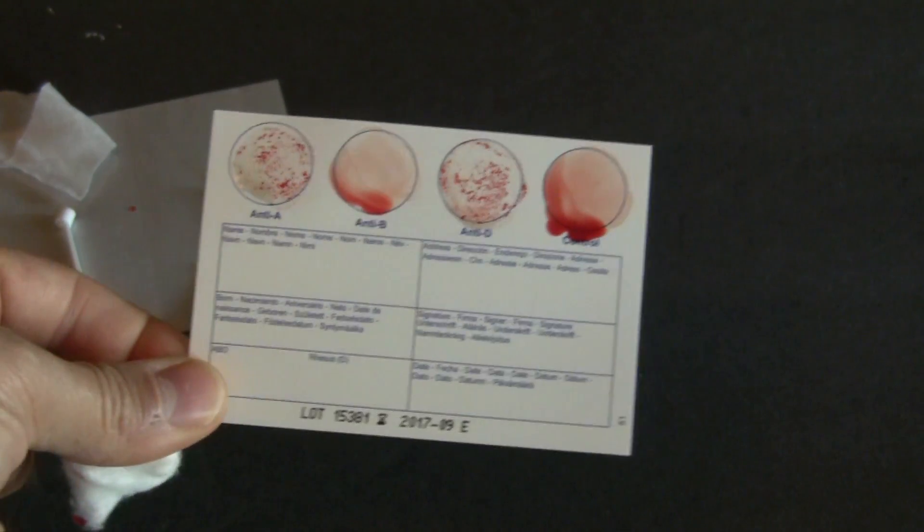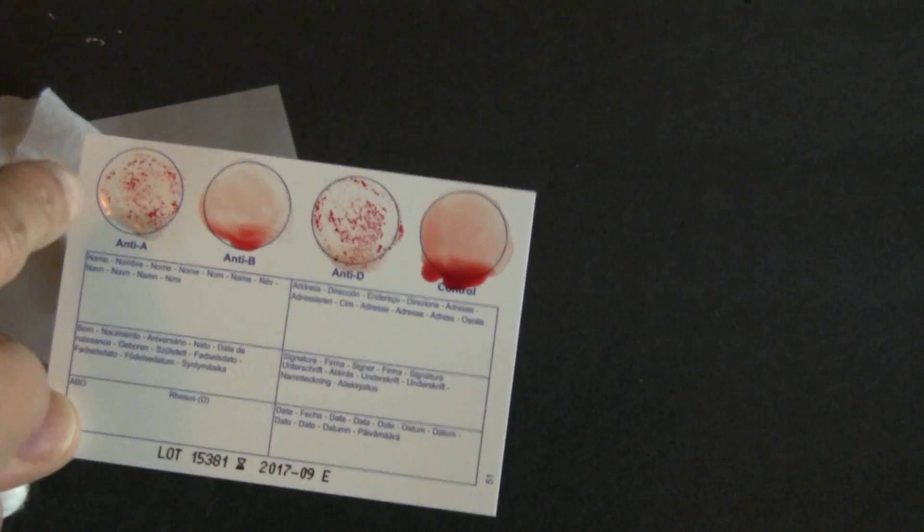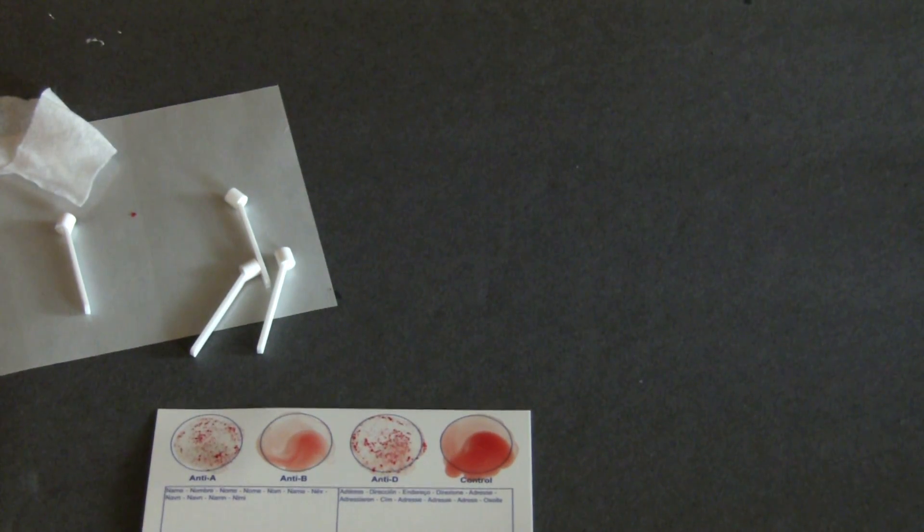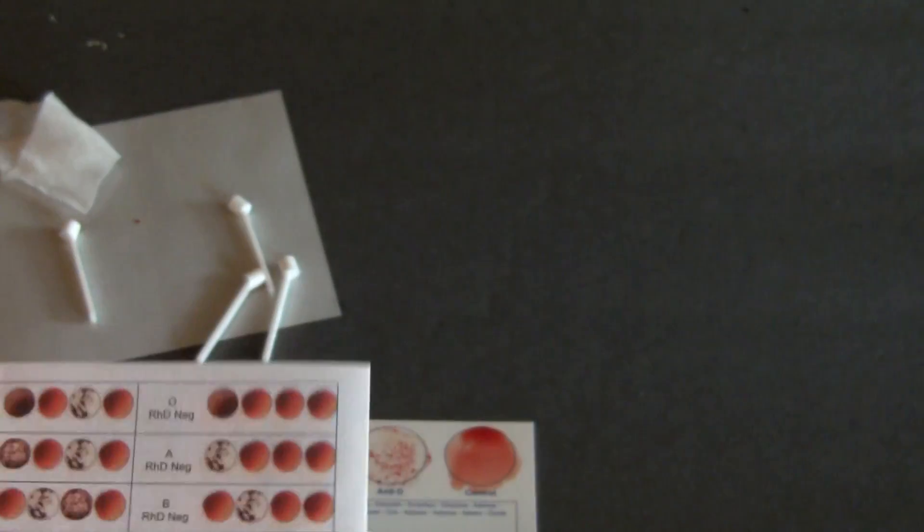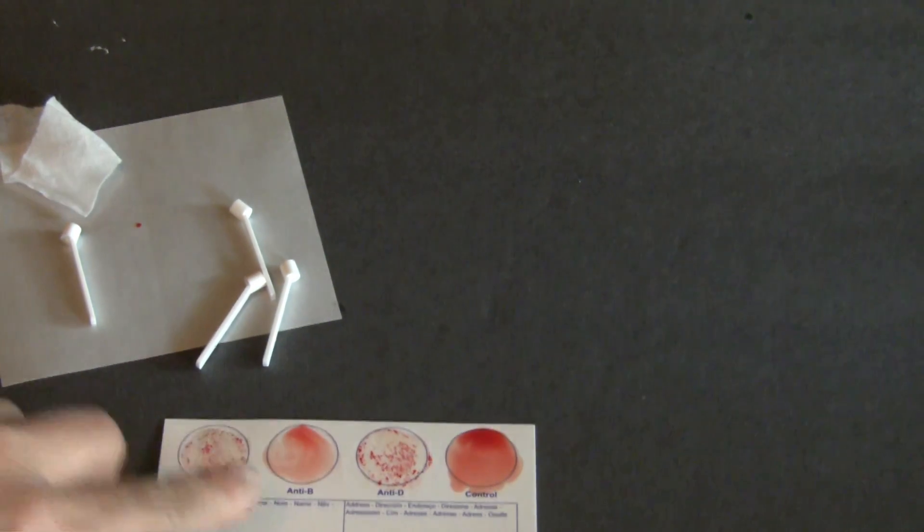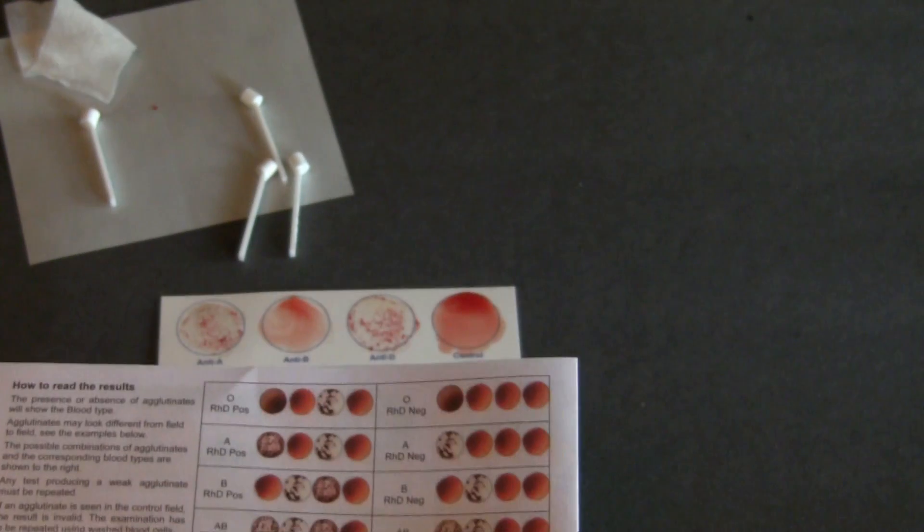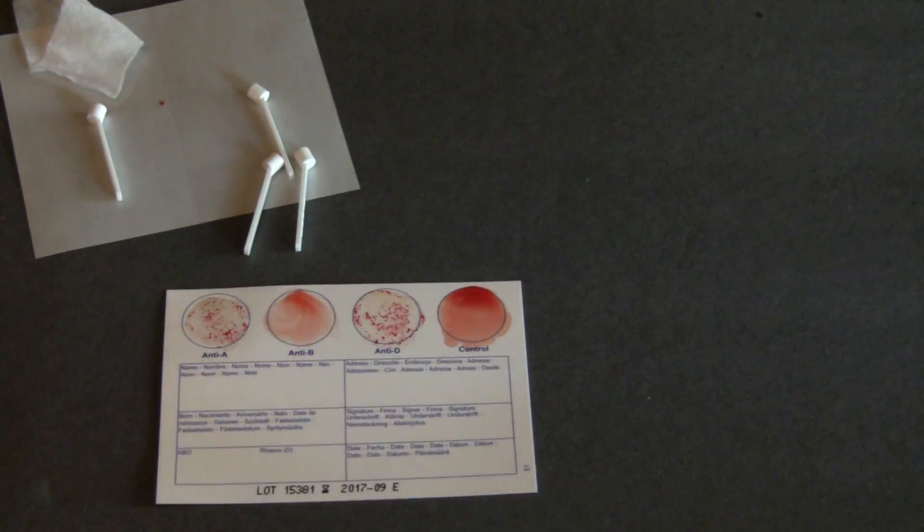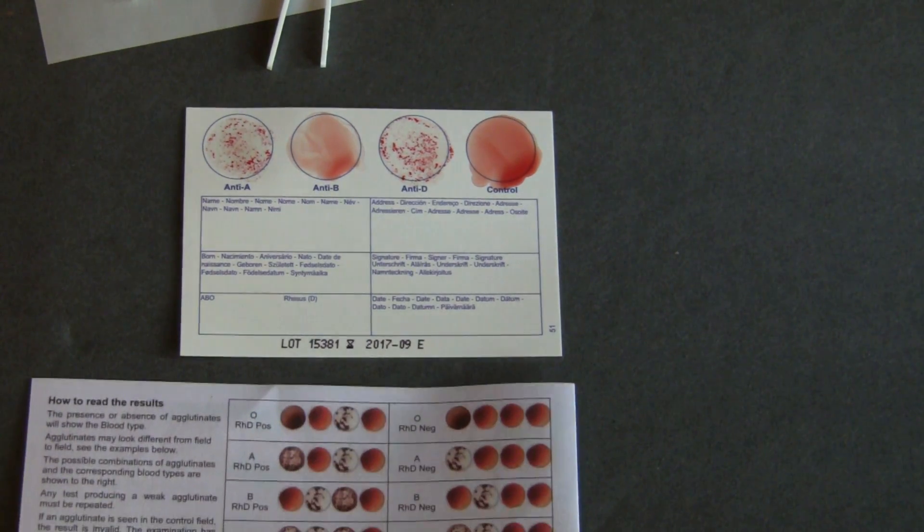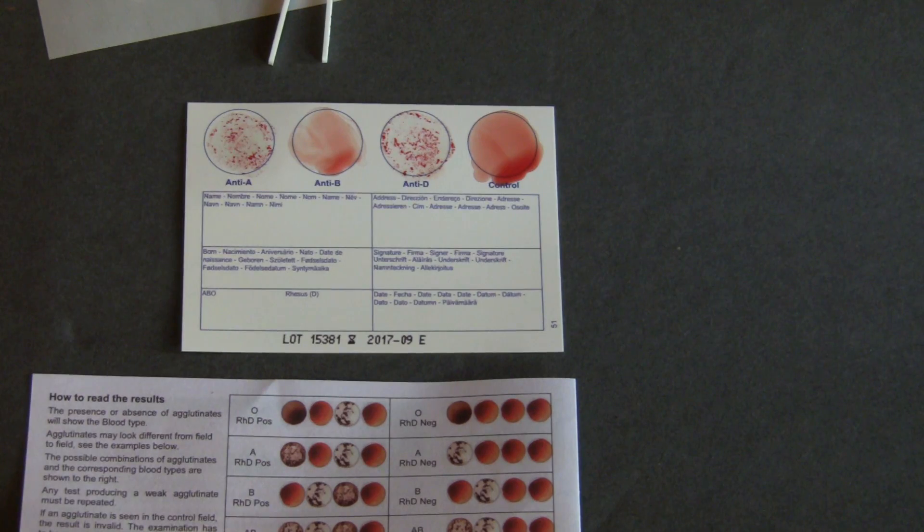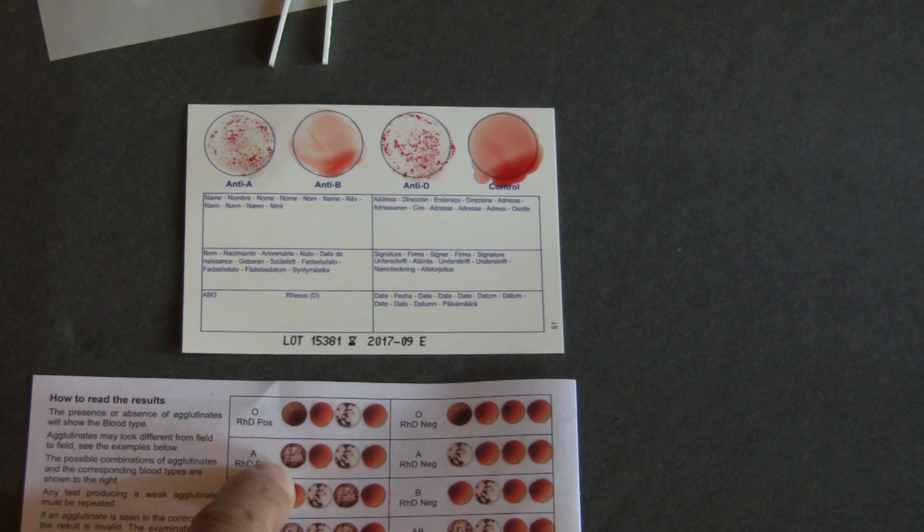So, it looks like to me, I'm A positive, and that's how you can read it. You can see, there's the card, and that's showing, so it looks like this one.